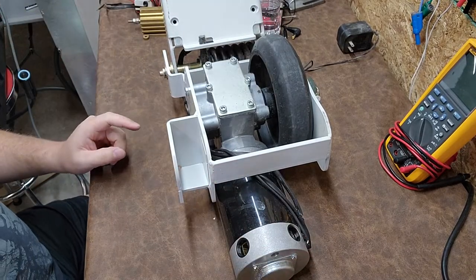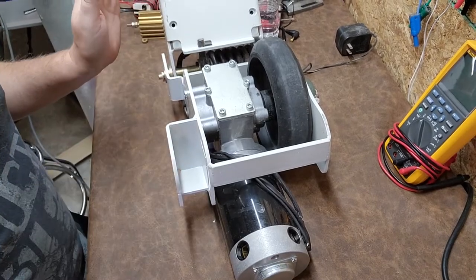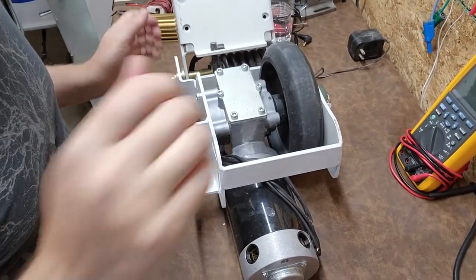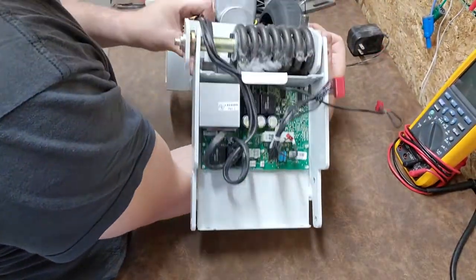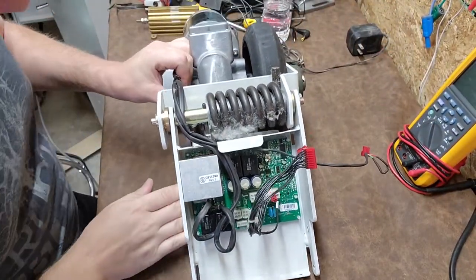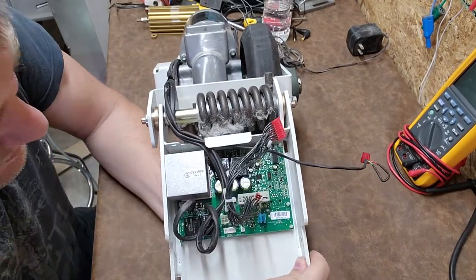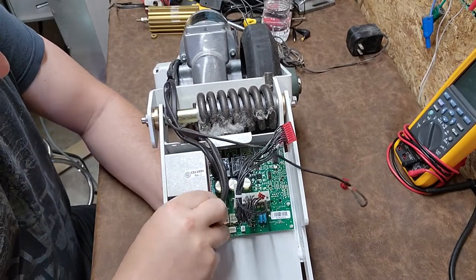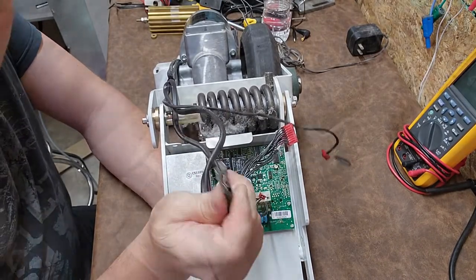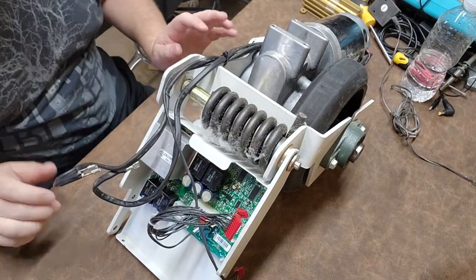The spinning is controlled by your controller, which is up here underneath this piece. Let me flip this around and show you the controller - this guy had just come off a stretcher so it's going to be dirty. Right here we have our power connections.